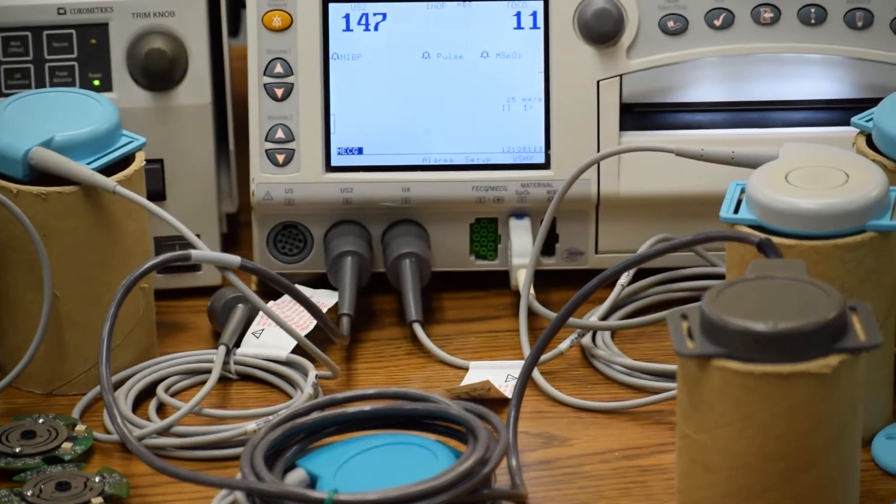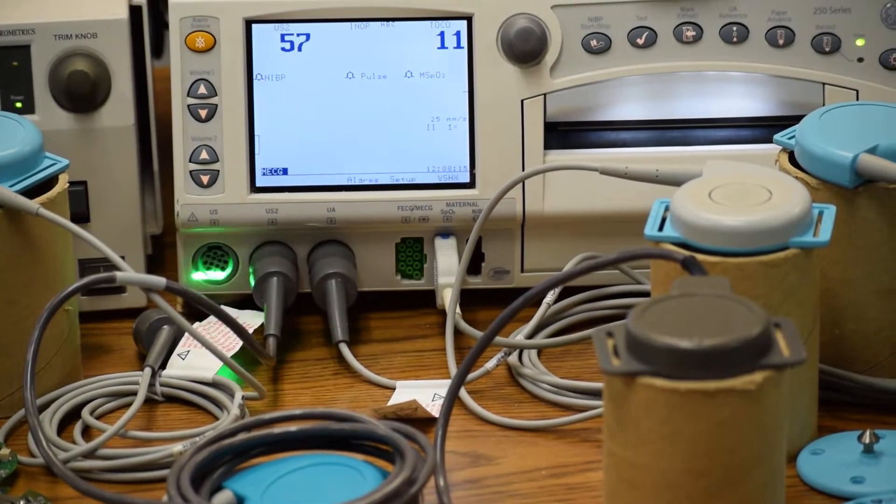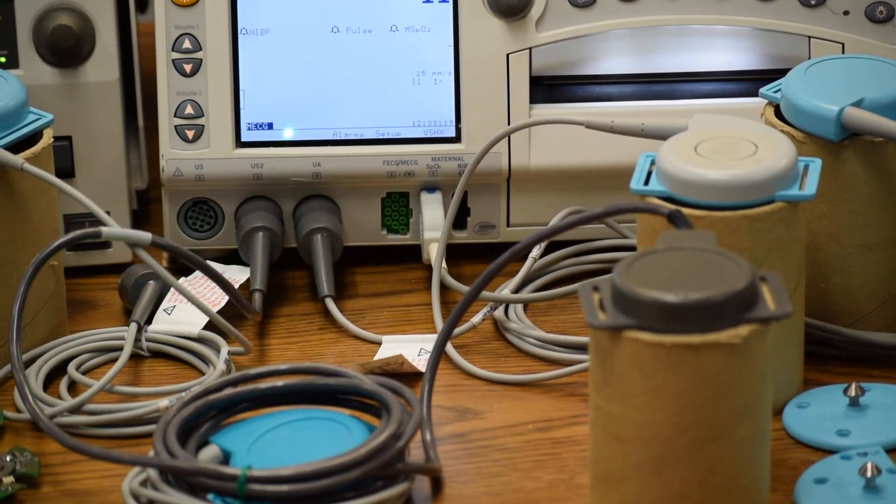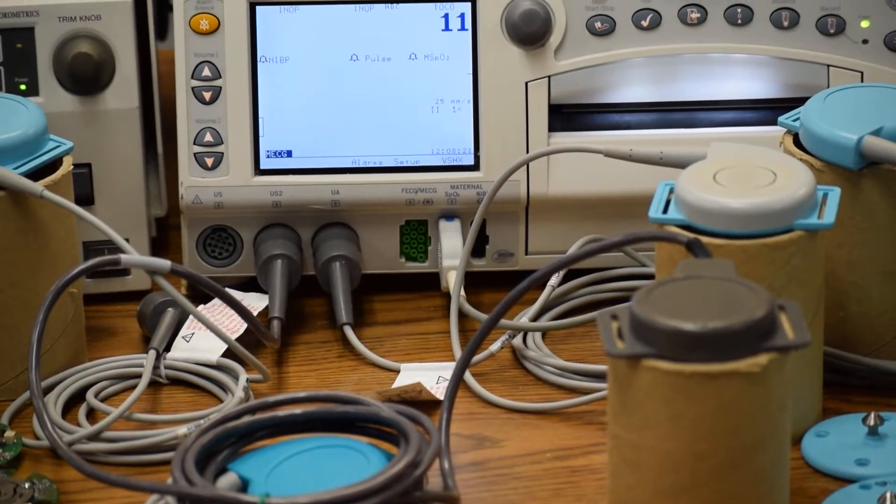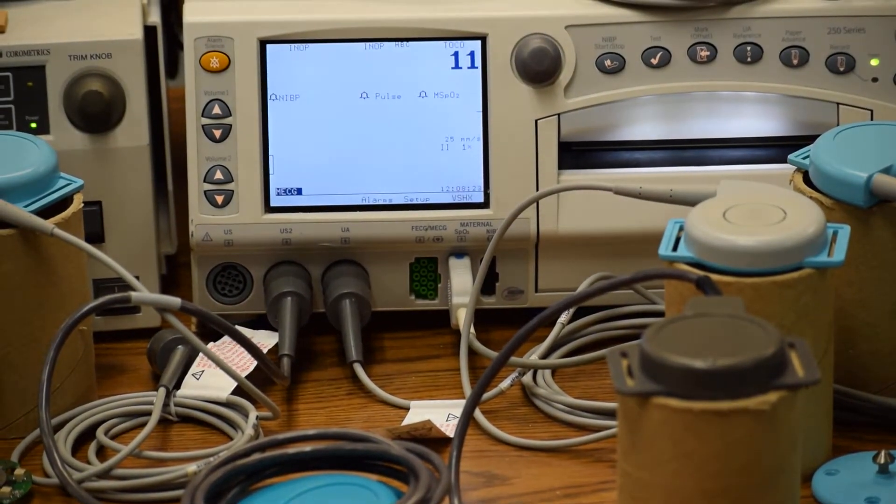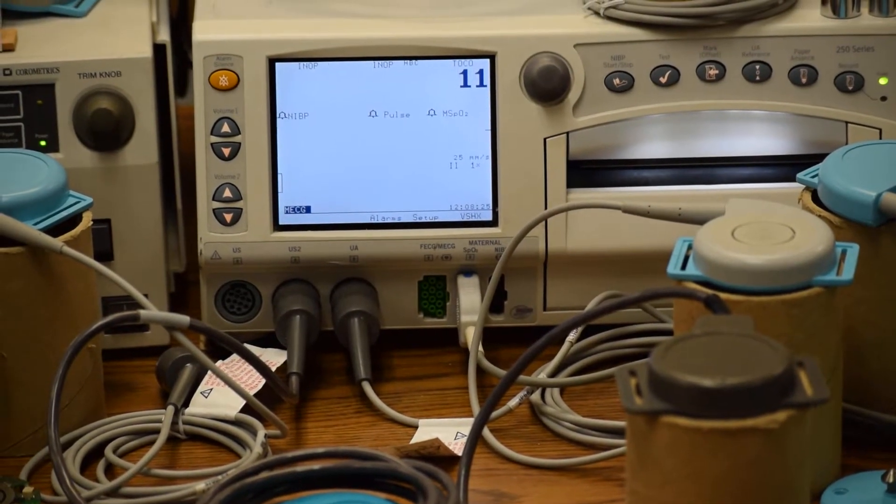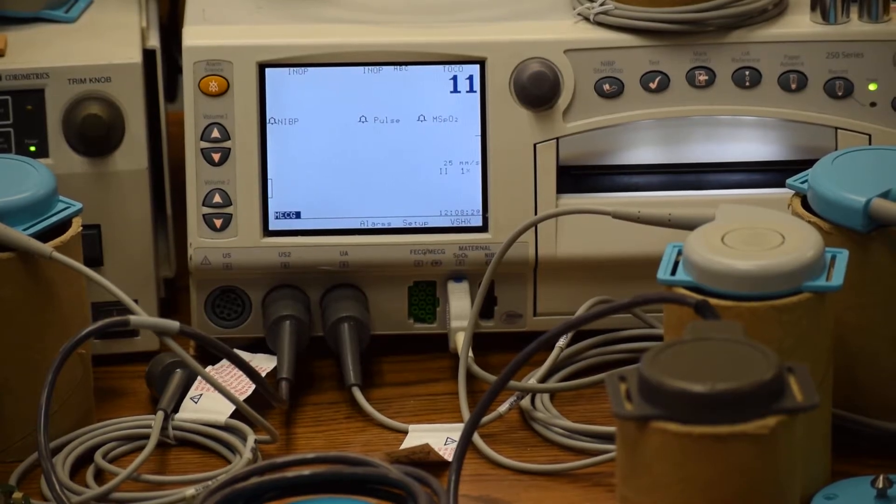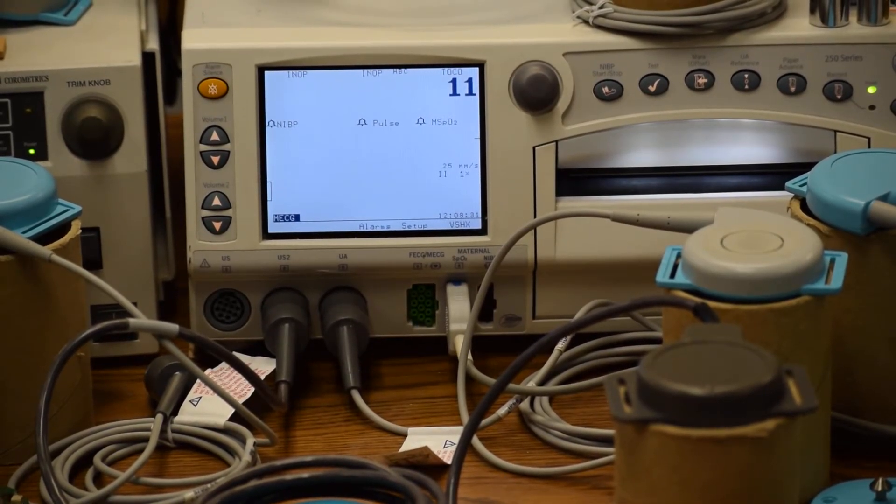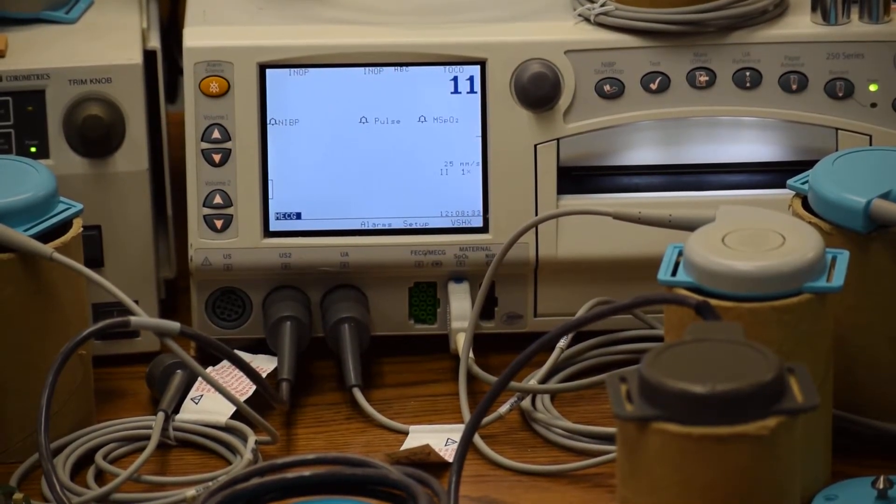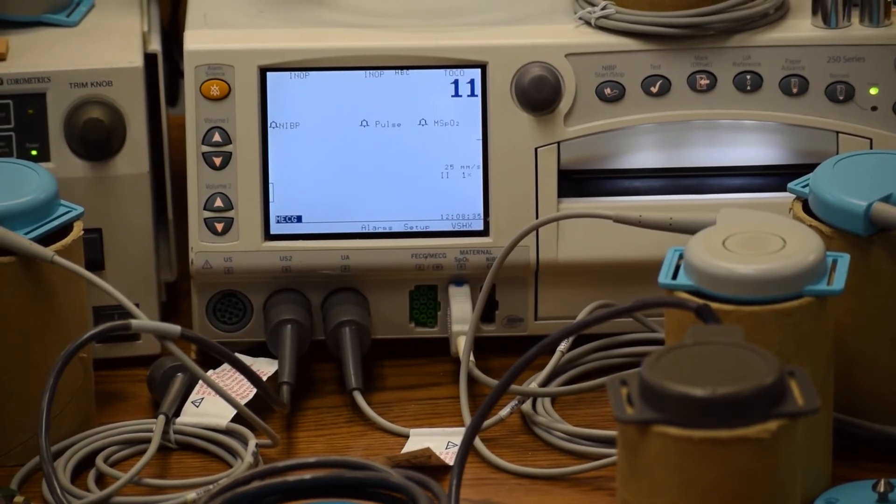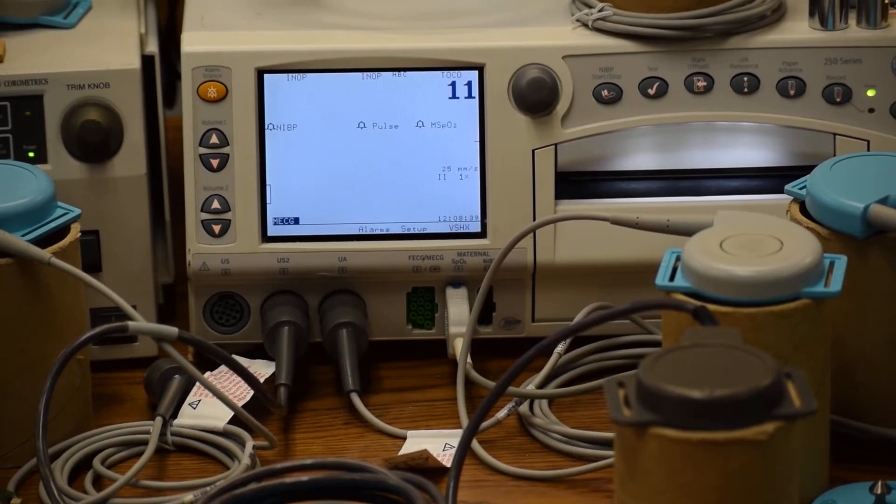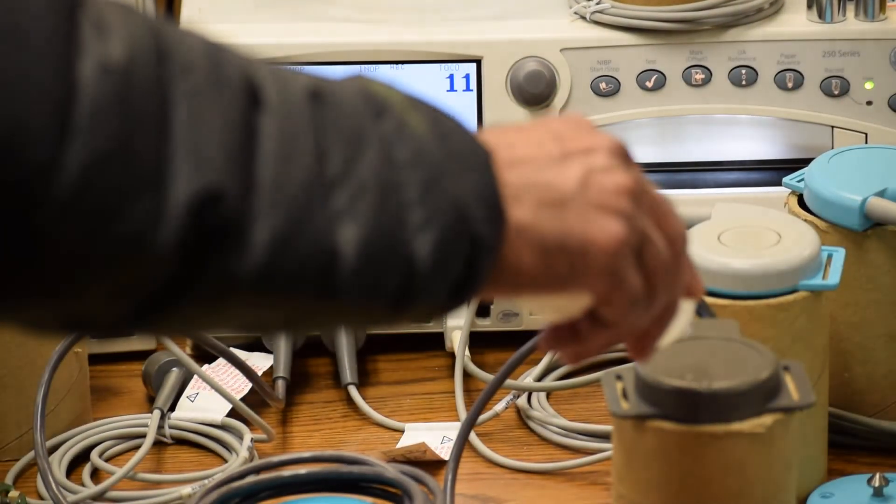It's very important to have these connectors from GE factory original, as over a period of time with a few connect-disconnect cycles, the fetal monitor sockets or female connectors become loosened and start picking up very high fetal heart rates in the range of 250. That causes a problem for clinicians to interpret whether the fetus is at stress or not. This transducer can be tested just by pouring water on the top surface.